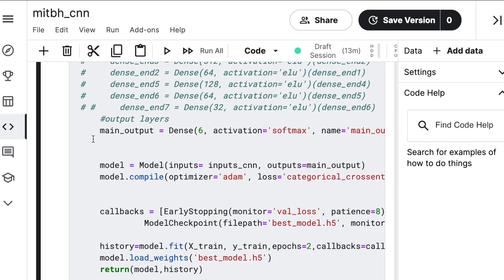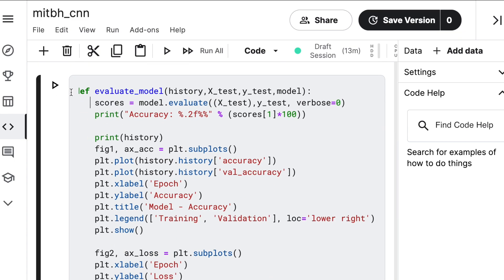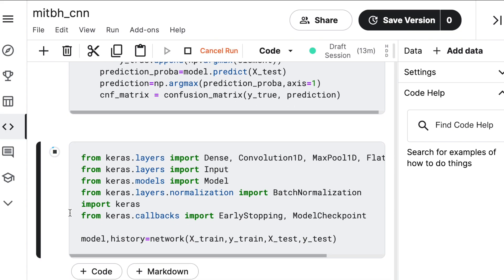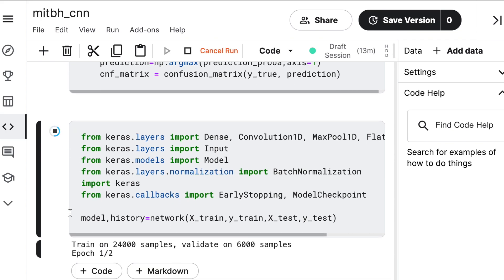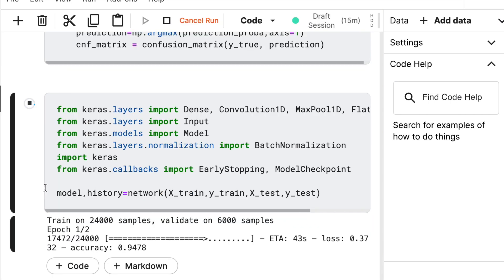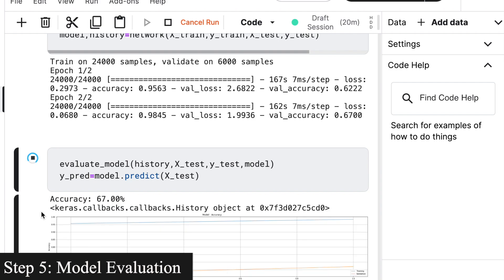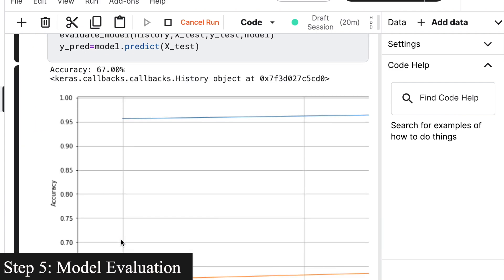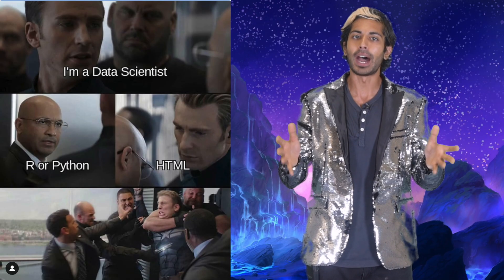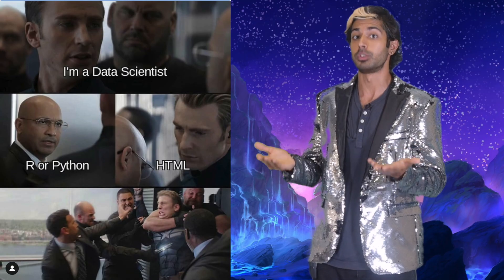Once the training process is complete, we can evaluate how the network learned over time, slowly approximating the correct predictions to classify a given part of the signal at a time step as an arrhythmia or not. By testing it on a part of our dataset, we can view its classification and accuracy scores. It looks pretty good, but this is just a Python script, so let's make this into something more usable.